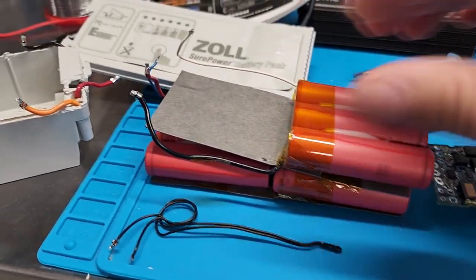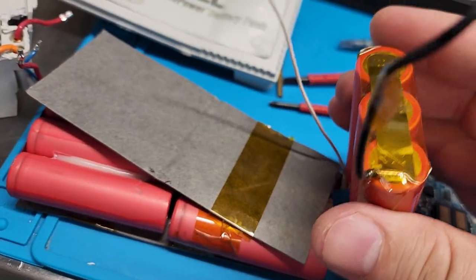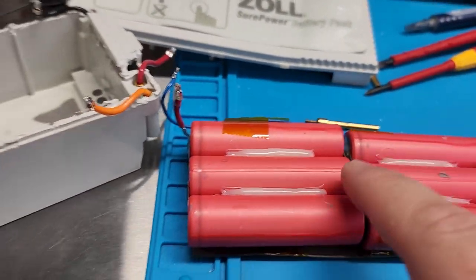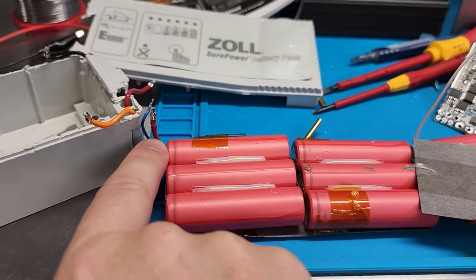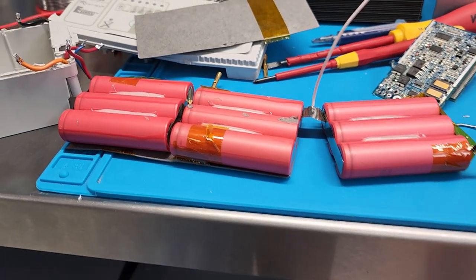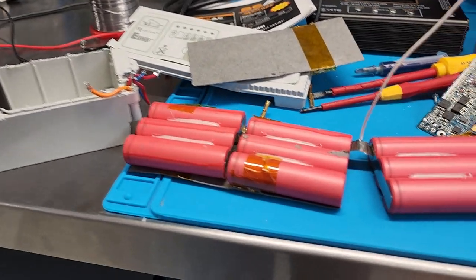The other lines coming out of this battery — a blue line and a white line — come down and monitor the individual cells. One wire measures between two points to get the voltage of cell one. The next pair gives the measurement for cell two, and the blue-to-white wire gives the measurement for the middle cell. That's how you do balance charging, because each cell has to be balanced individually — the cell with the lowest resistance will otherwise get all the current, so this ensures they're all at the same level.